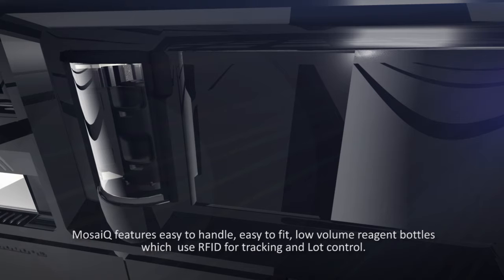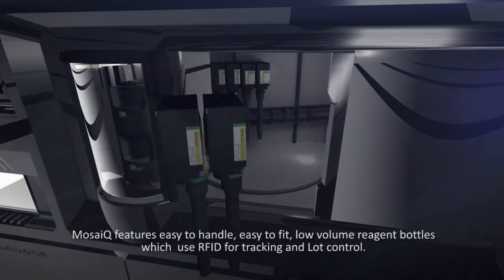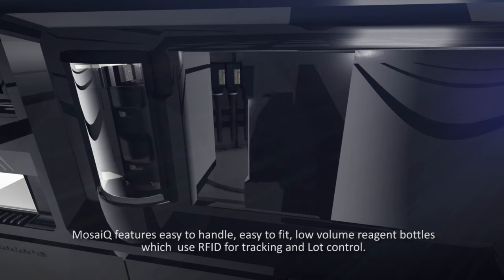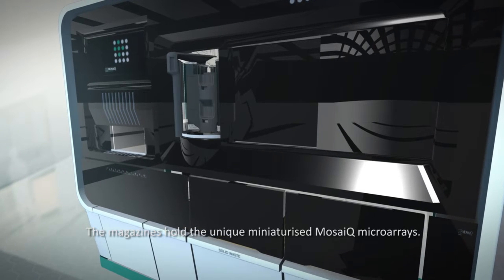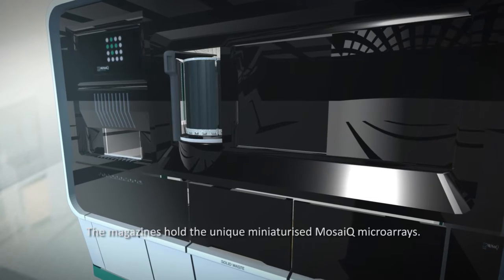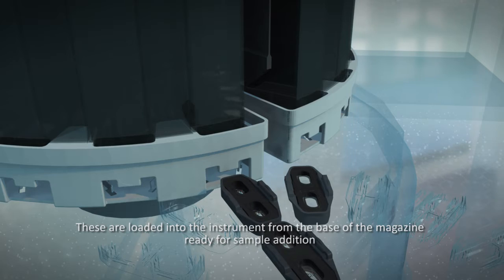MosaiQ features easy-to-handle, easy-to-fit, low-volume reagent bottles which use RFID for tracking and lot control. The magazines hold the unique miniaturized MosaiQ microarrays. These are loaded into the instrument from the base of the magazine, ready for sample addition.